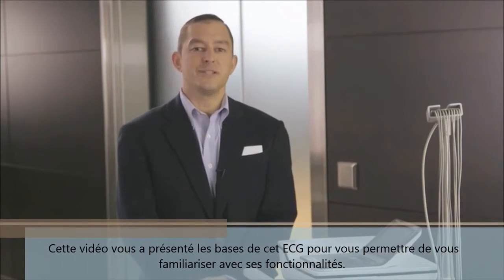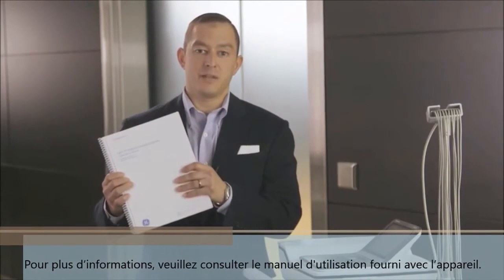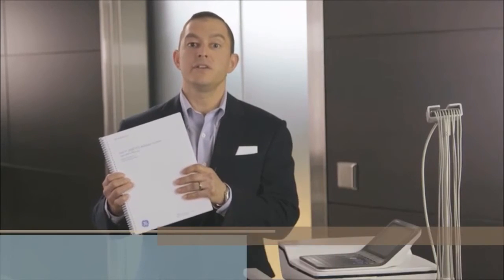Thank you for your interest in the MAC 2000 resting ECG system. This video has been an introduction to get you up and running with your MAC 2000. For more comprehensive instruction, please consult the operator's manual that came with your system prior to utilizing the unit.